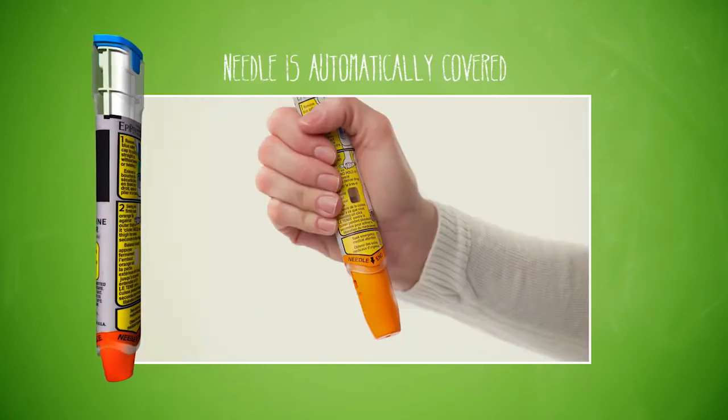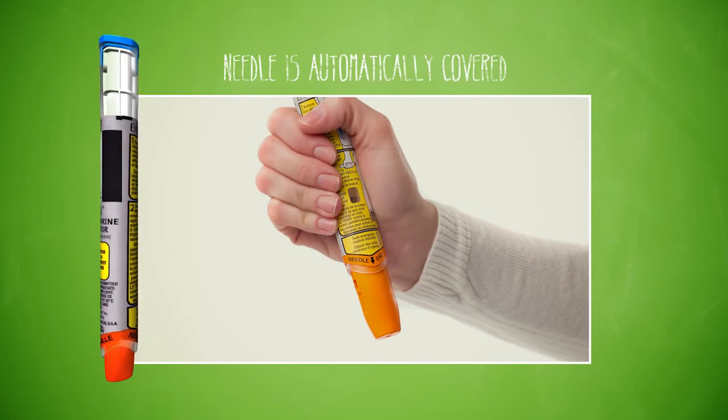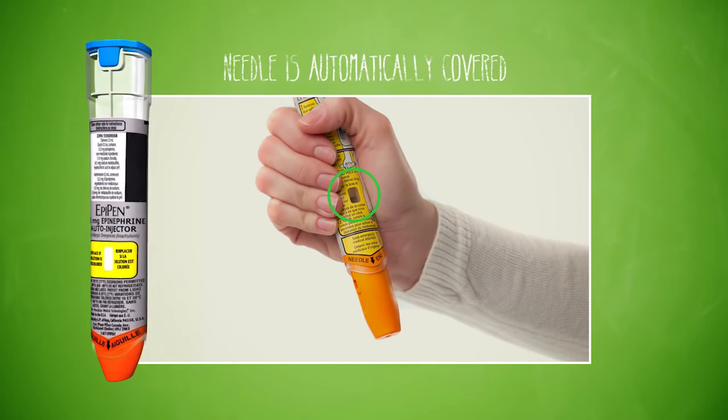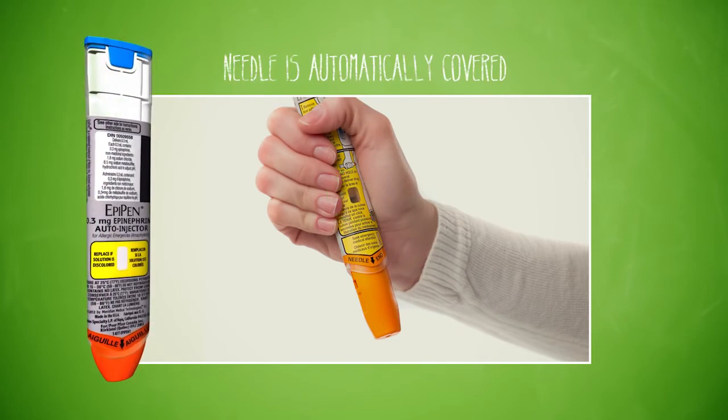You will not see the needle before, during or after use. The extended orange needle cover and black indicator in this window will show you that EpiPen has delivered its epinephrine.